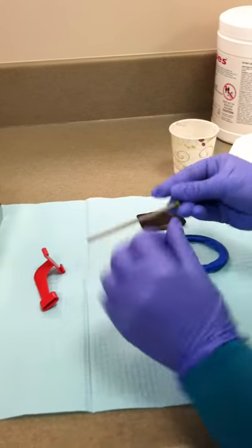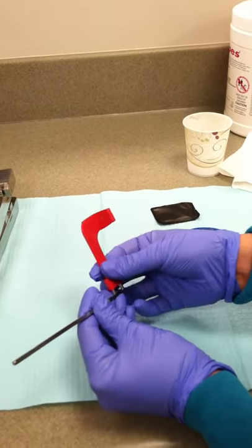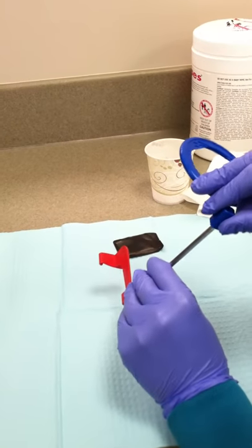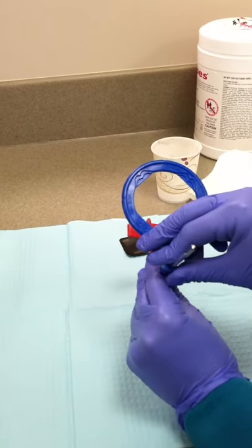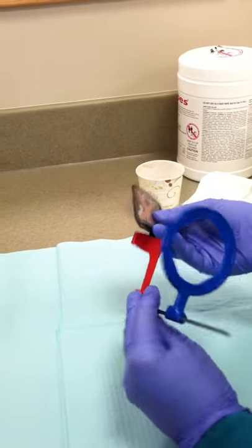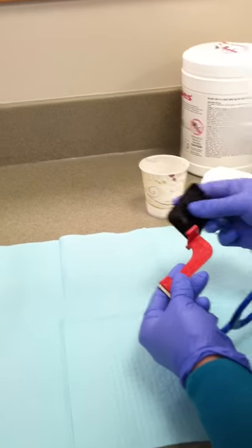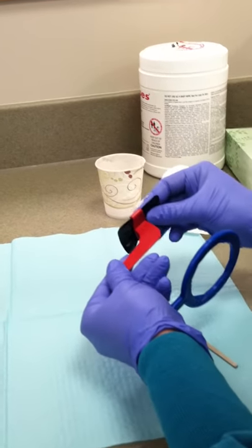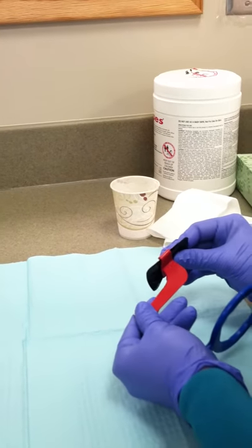When attaching the ring, make sure the ring is centered so that you can see the entire bite block through the ring. A size 2 phosphor plate will be used with the A side facing away from the ring, so the black side is visible when looking through the ring. To insert the phosphor plate, you will insert it so it is completely secured and centered on the bite block.